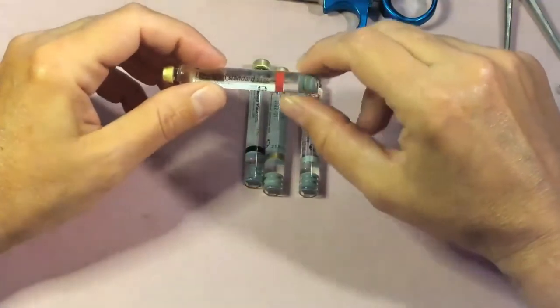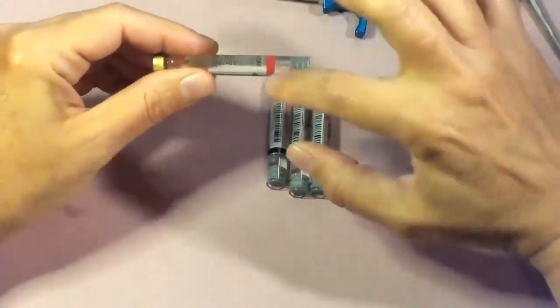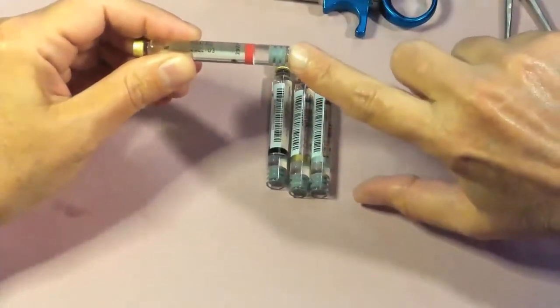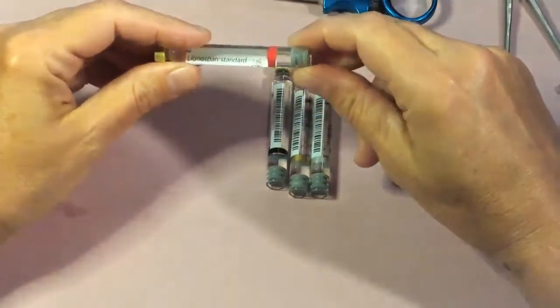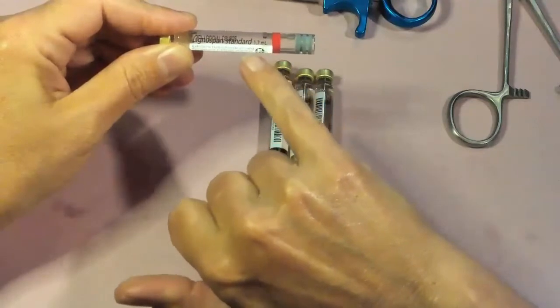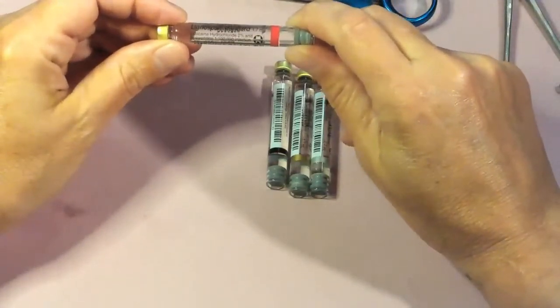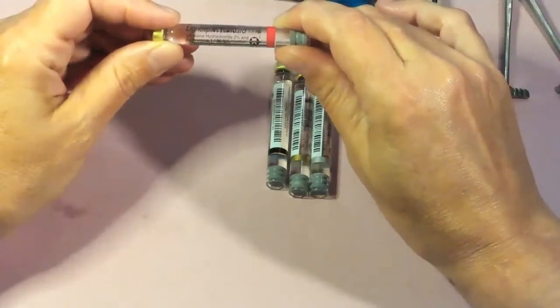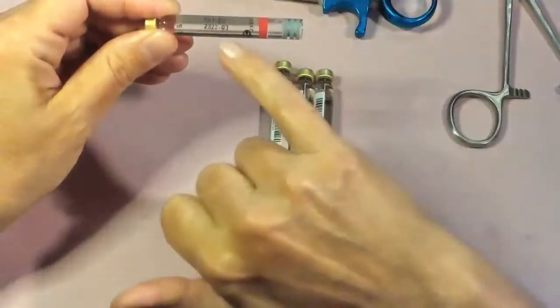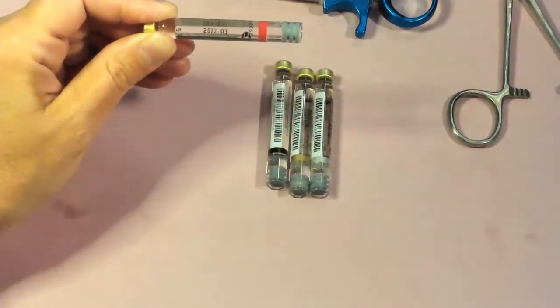The glass tubing makes up the body of the cartridge, and the manufacturing label goes over the top with our color code. At the end is our rubber stopper. The label also indicates the amount of anesthetic in the cartridge — 1.7 milliliters. Most cartridges contain anywhere between 1.7 and 1.8 milliliters, but they indicate 1.7 due to variability between cartridges. We also have our expiration date on the cartridge and always want to check that before use.